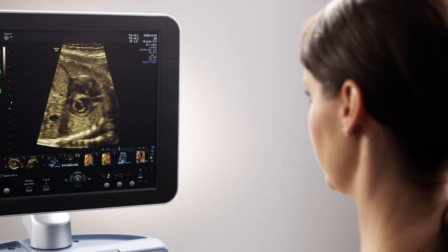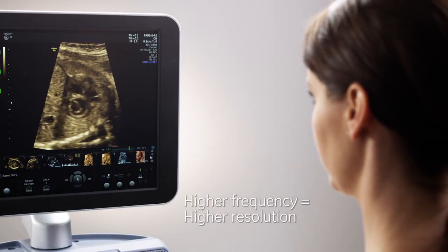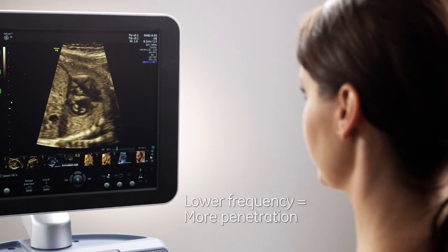Regardless of using harmonics or fundamental frequencies, it is recommended to start at the highest frequency for higher resolution, and then lower as more penetration is needed.